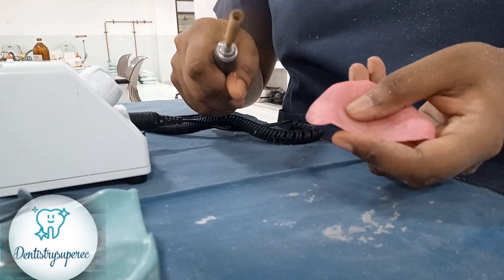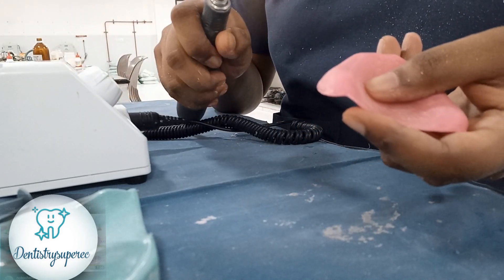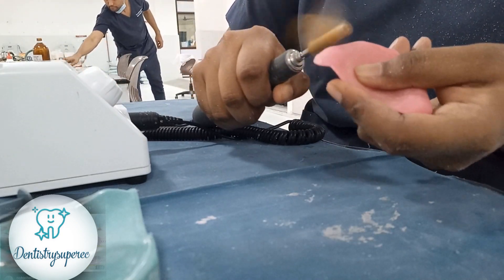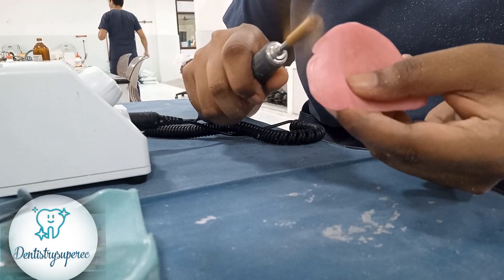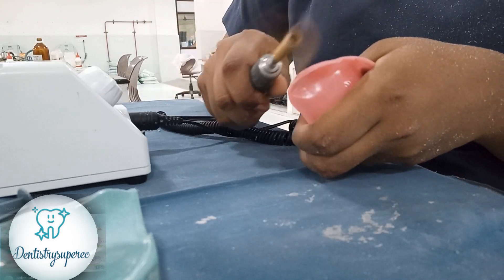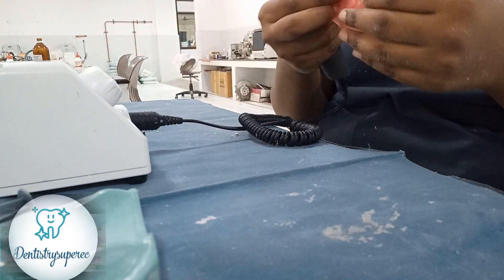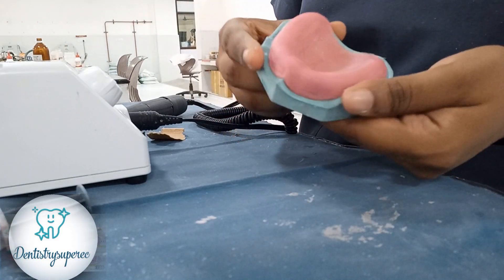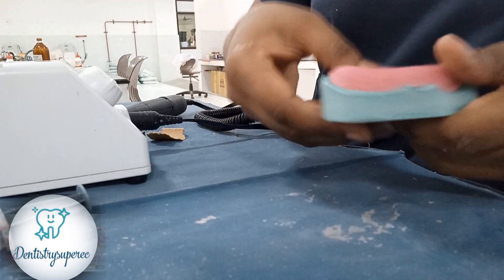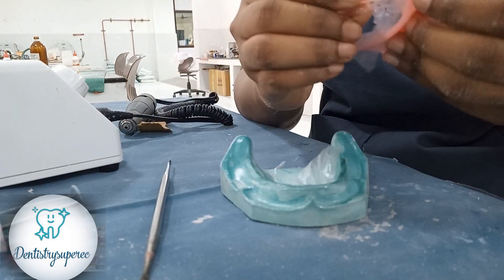As a note, you have to use different sizes of sandpaper to get a very good finish for your final denture — done like this with the mandrel. Once we have finished, we keep the denture on the cast and check all the surfaces.